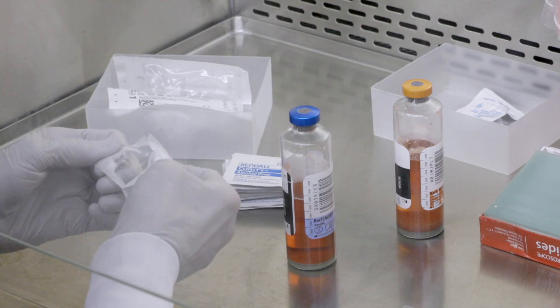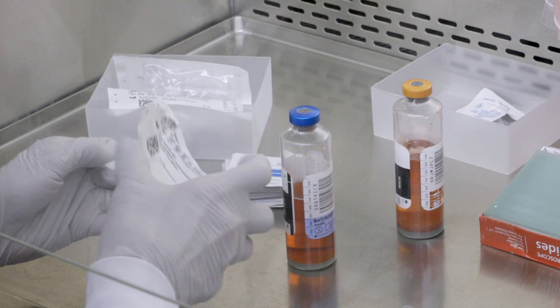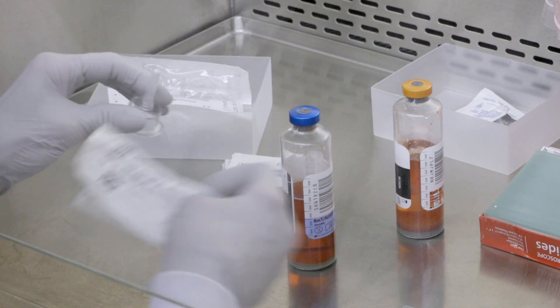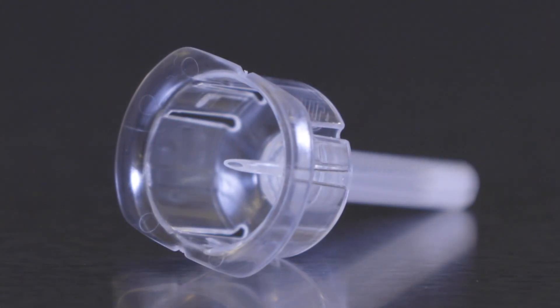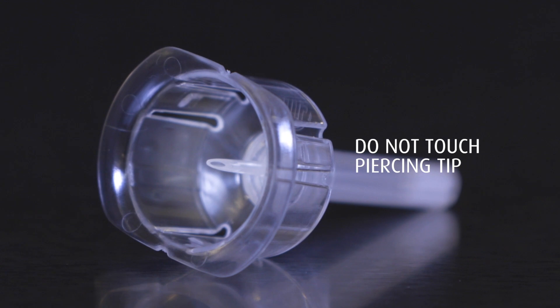Open the SCU-2 package by peeling it apart at the peel tab end. Remove SCU-2 from package, being careful not to touch the piercing tip.